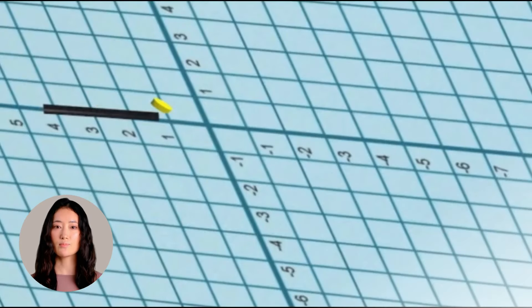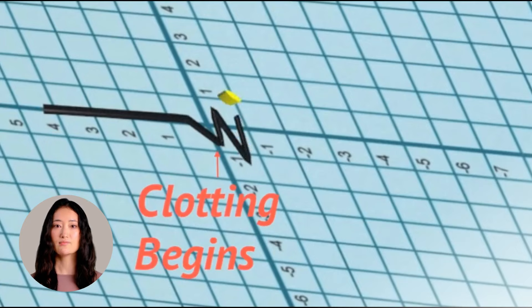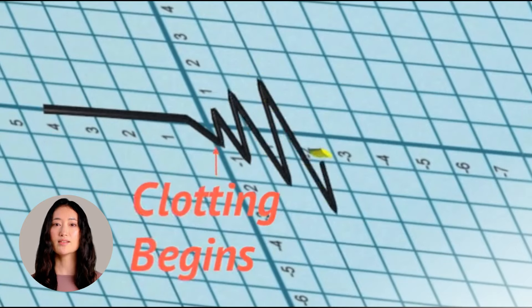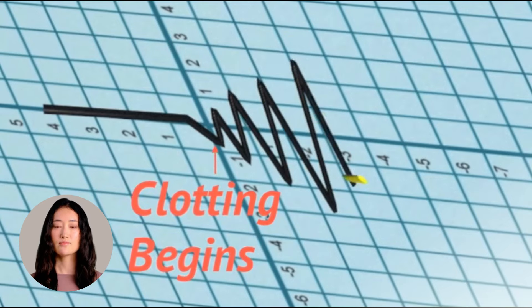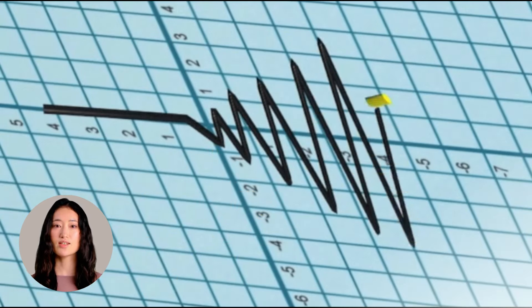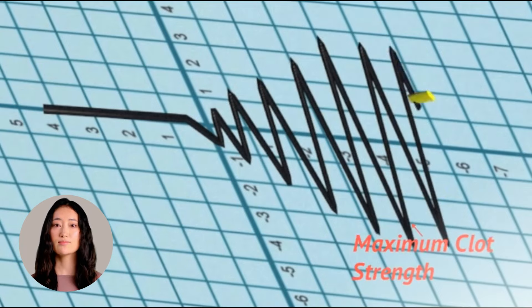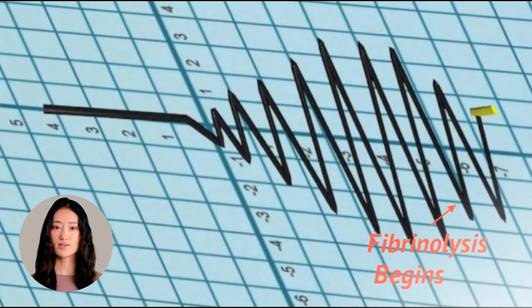The torsion pin remains motionless until clotting begins. The amplitude of the pin motion increases gradually with time as the clot grows stronger. Then, amplitudes start to decrease as fibrinolysis begins and the pin starts to slip. The graph is analyzed and five parameters are measured.